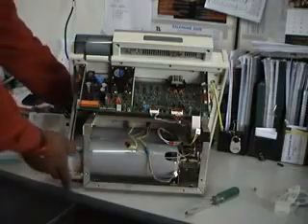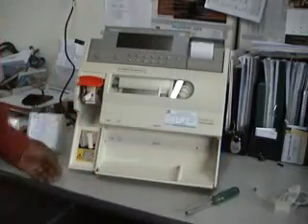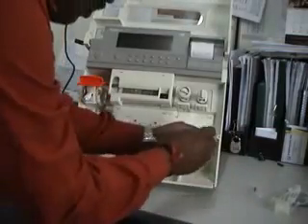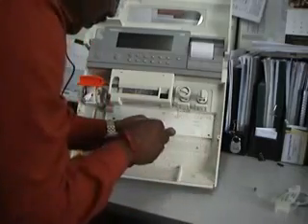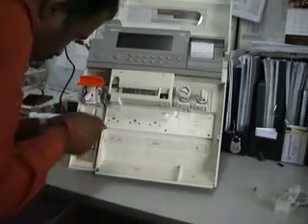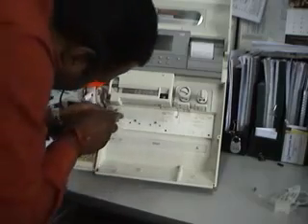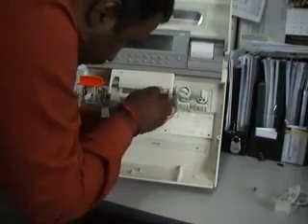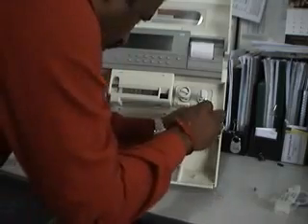Remove the connectors so that you can remove the manifold freely. Now turn the machine to the front. Open these screws on the manifold — they are plastic screws. Remove screws one, two, three, four, five, and six.